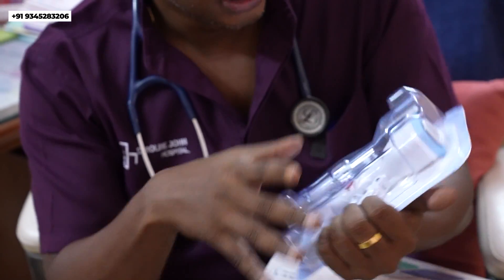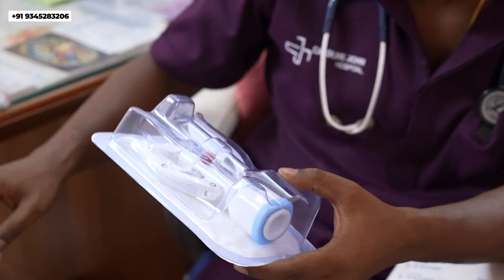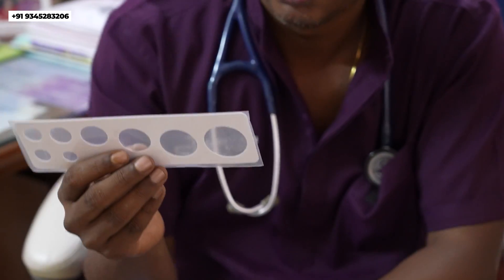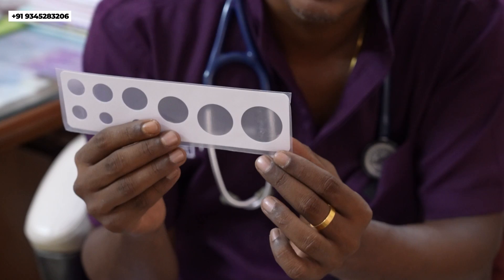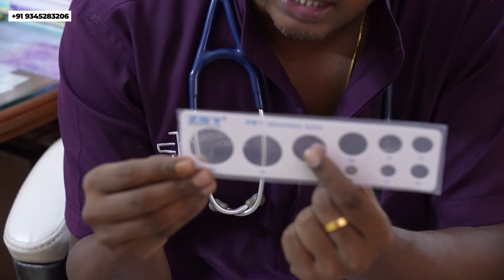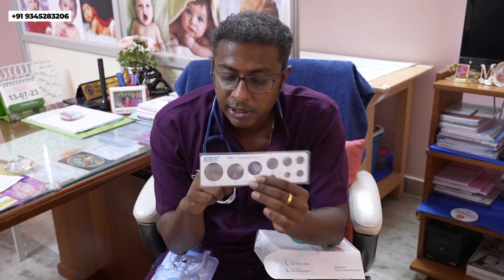The stapler component is located here. This device comes in different sizes, which are measured using this measuring tool. The sizes available are 34, 30, and 26 for the adult penis; sizes 22 and 18 are for adolescents; and sizes 10, 12, 14, and 16 are for infant penises.